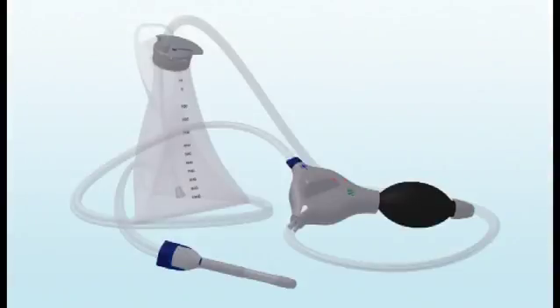After proper training, most people will be able to perform anal irrigation without the aid of a helper. And almost everyone who tries Peristine will be able to predict the time and place of their toilet visits. It takes approximately two to four weeks to adapt to a personalized bowel care routine.